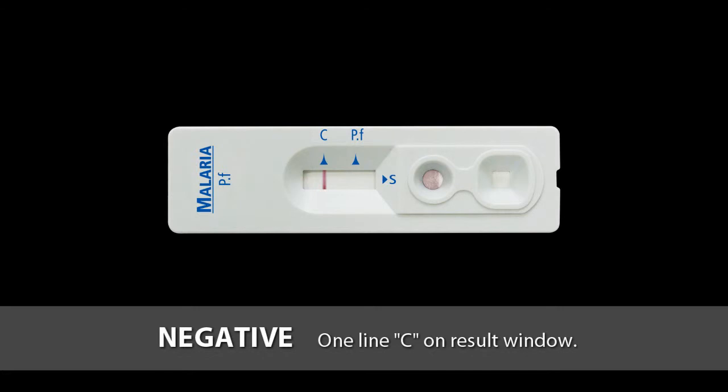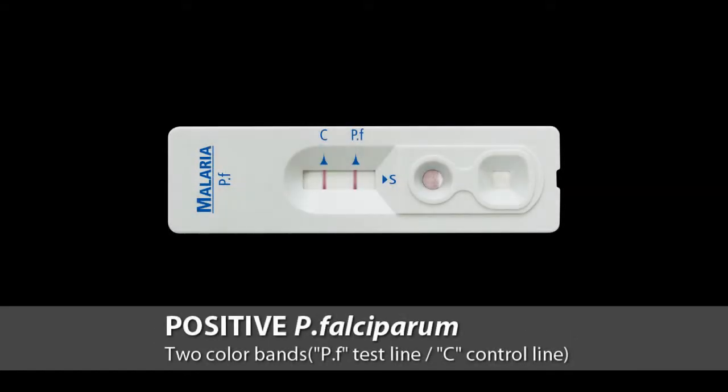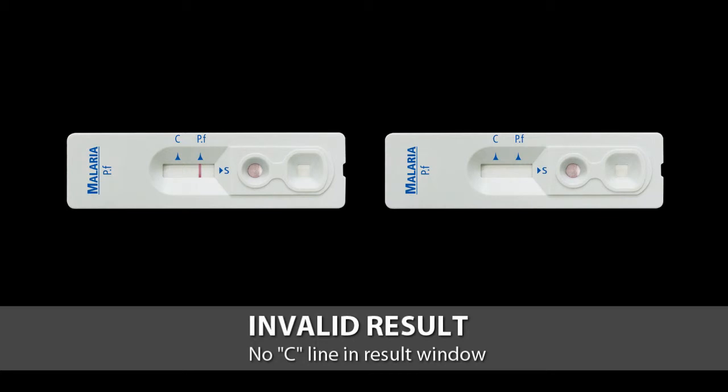Only one line, C, on the result window means negative. 2 color bands on the PF and C lines mean Plasmodium falciparum positive. If no line appears near the letter C, conduct the test again with a new test device and a new inverted cup.